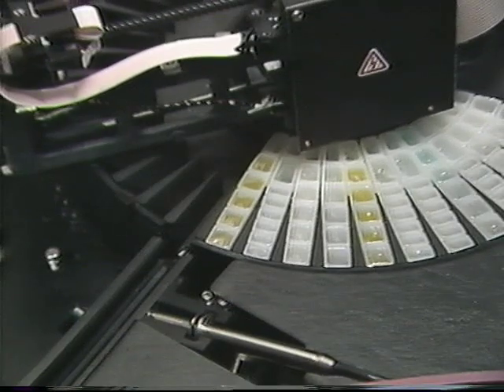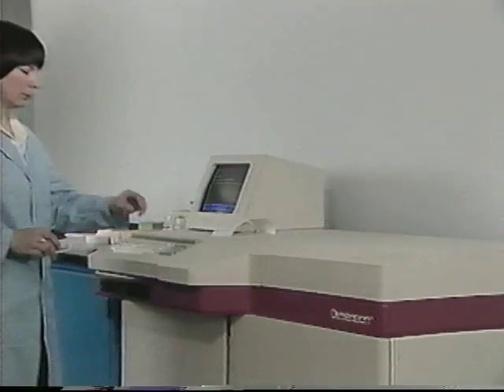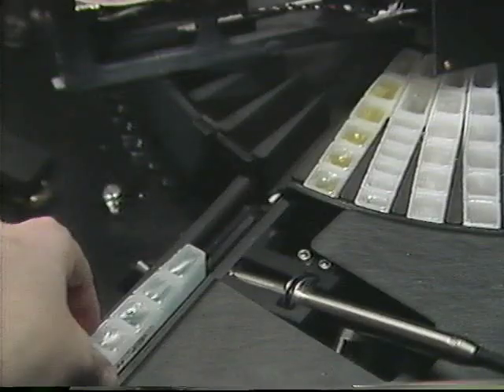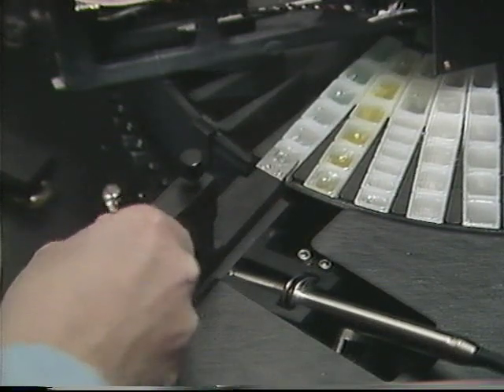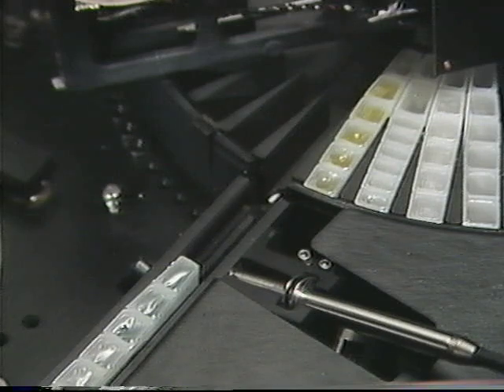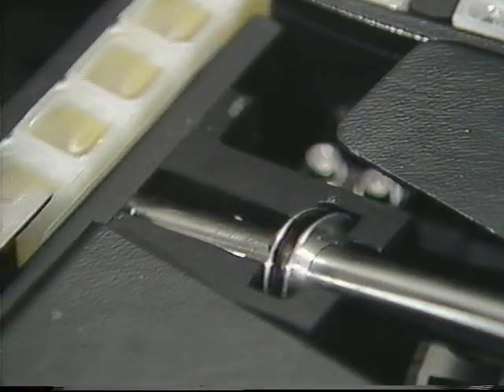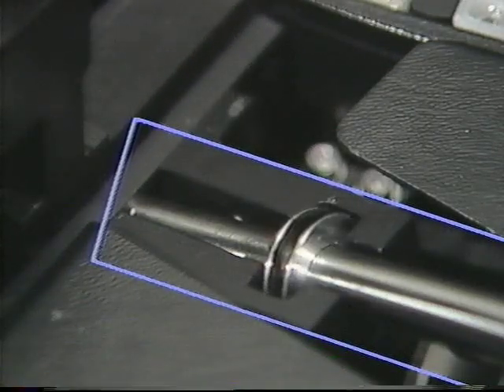The refrigerated reagent tray will hold up to 45 Flex reagent cartridges, giving the operator method and lot flexibility. Adding or removing Flex cartridges from the reagent tray is a simple process. New Flex cartridges are inserted in the reagent shuttle and pushed forward into the tray past the barcode reader. Flex cartridges are removed in the same manner.